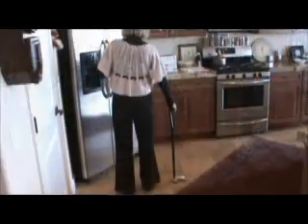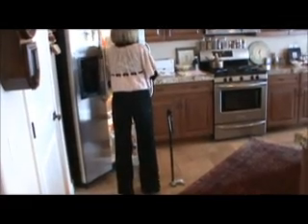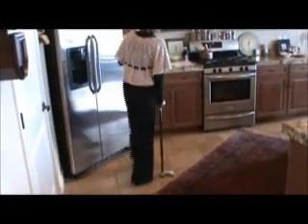The other nice advantage is that it's self-sustaining. It can stand on its own, so it's always ready for me — if I want to leave it right there, it's ready when I'm ready.